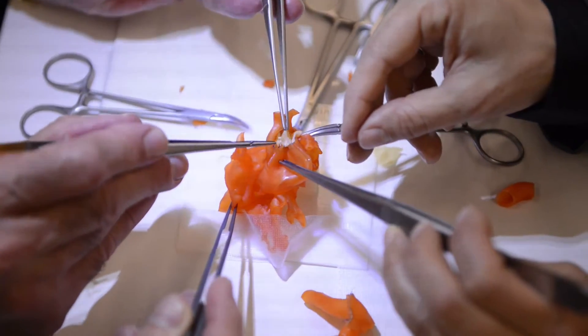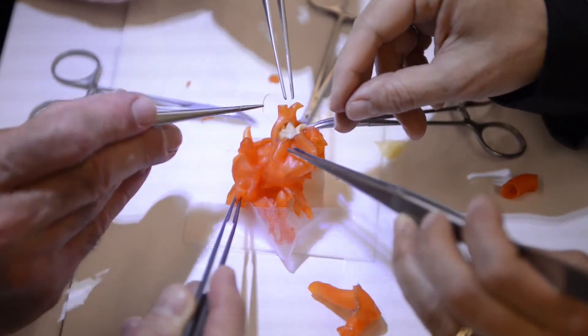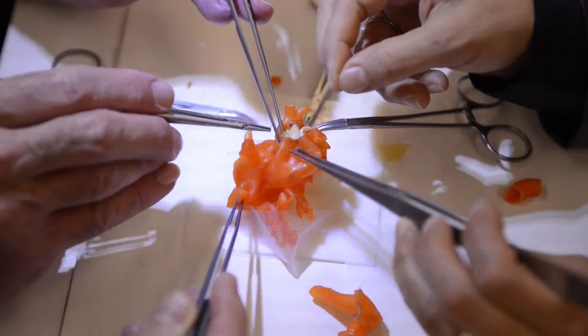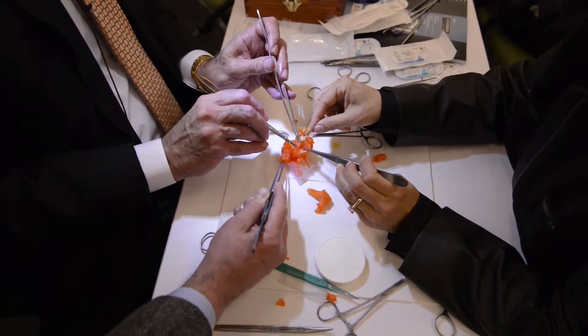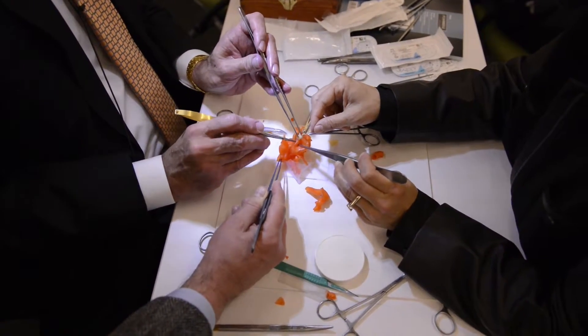We can see where the holes in the hearts are. What we are still missing is the valves inside the heart, so it will be some time before we can actually print the valves themselves. We're using five different models, and each of the models represents a very specific form of disease that is very different — it came from five different patients with five very different problems.